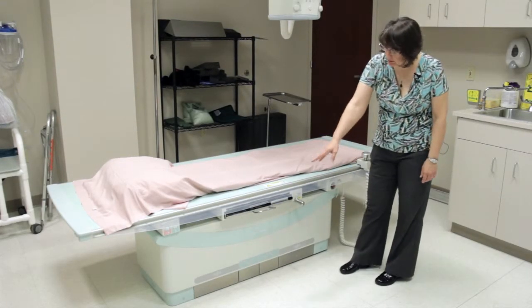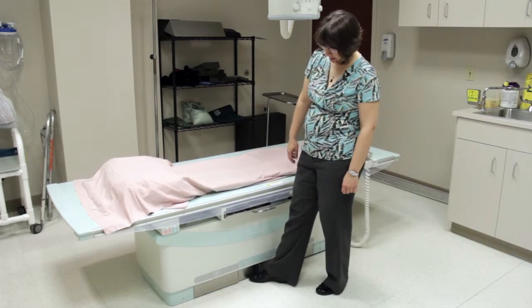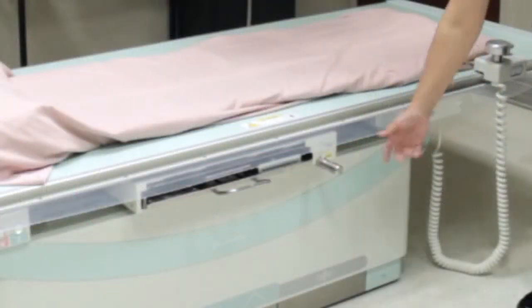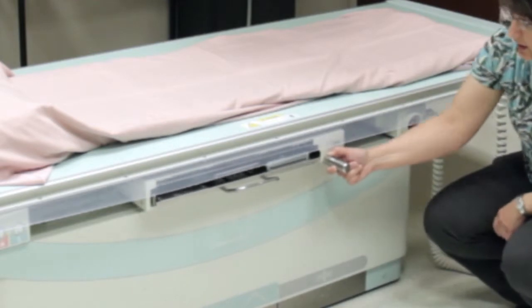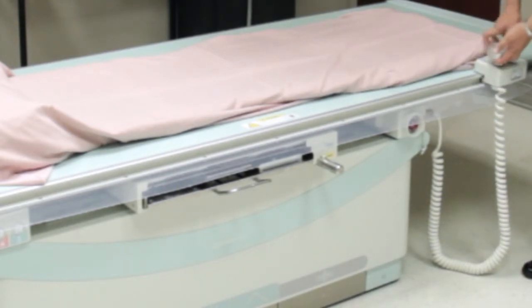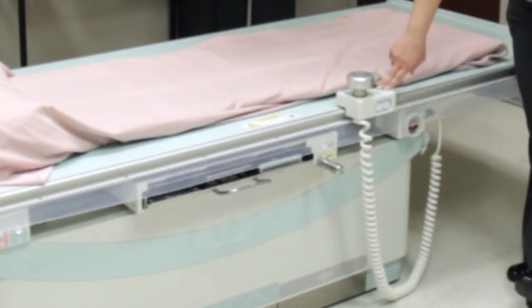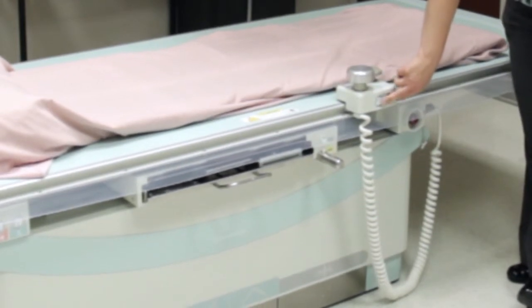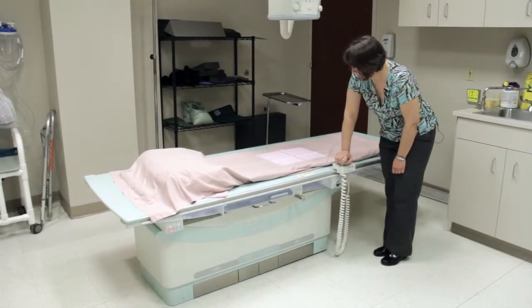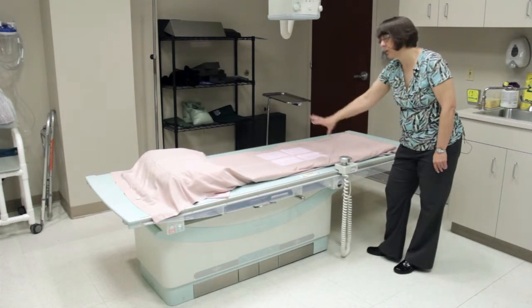Going over the basics on the table: you have kick pedals down near the floor for up and down, as well as an all-locks release on each end. The Bucky is a press-button to release — line up where you need it. This handle does not have to be on the end; you can position it anywhere along either rail. On this handle you also have up and down as well as a tabletop all-locks release. When you press the all-locks release — whether it's the mushroom button or the pedal — you're going to get your collimator light on so you can see where you're positioning.